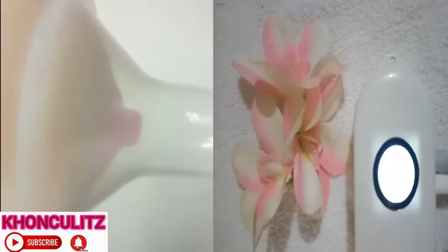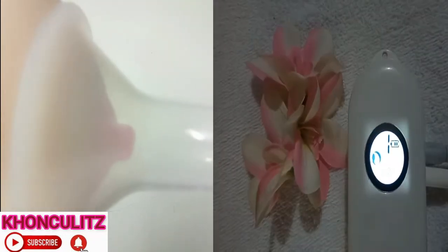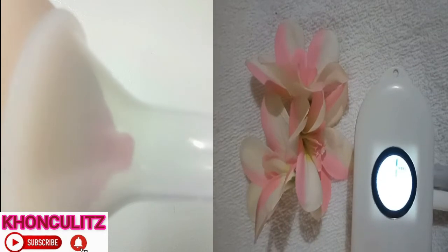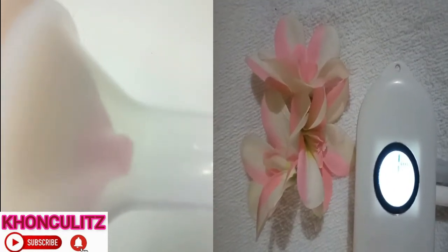We will begin with the massage mode of Wise Mom Pocket. So if you'll try to look at this one, the massage mode of Wise Mom Pocket — this is number one — and it's already suctioning. Okay, let's have number two.